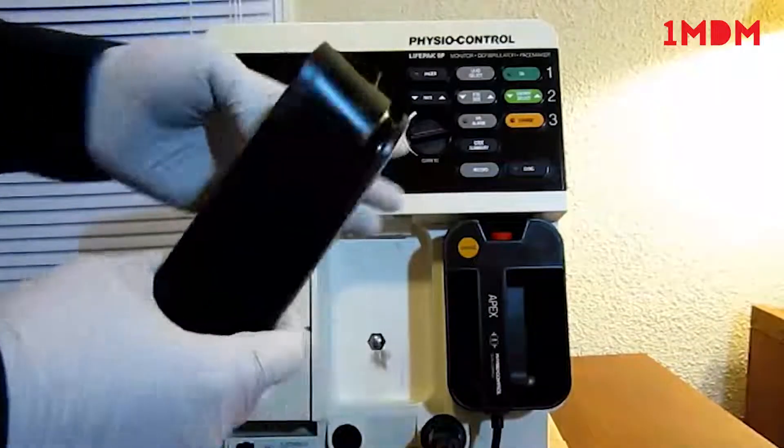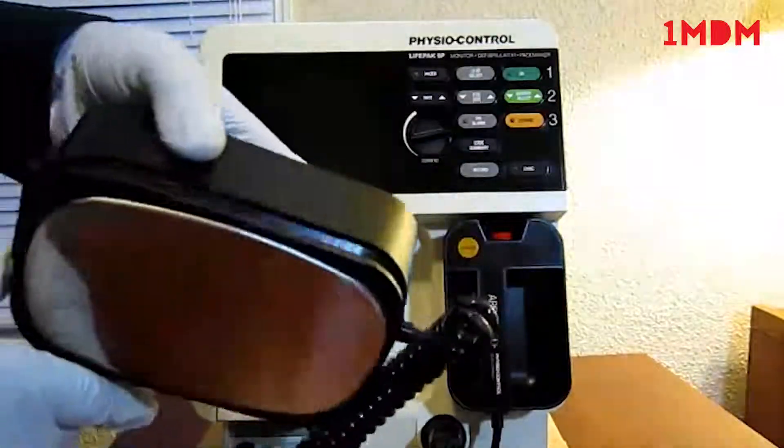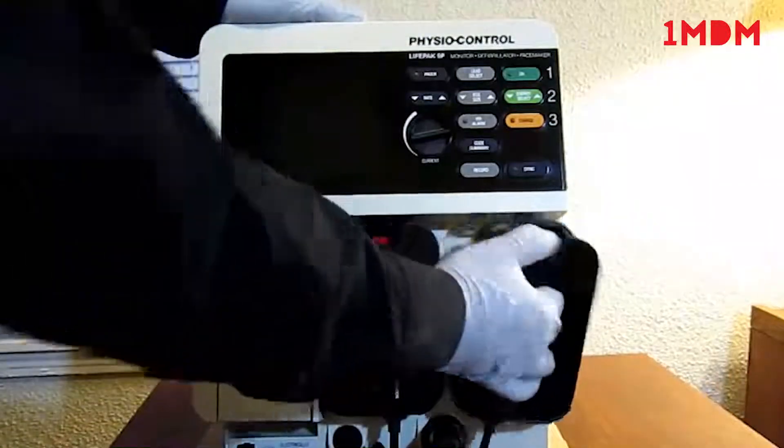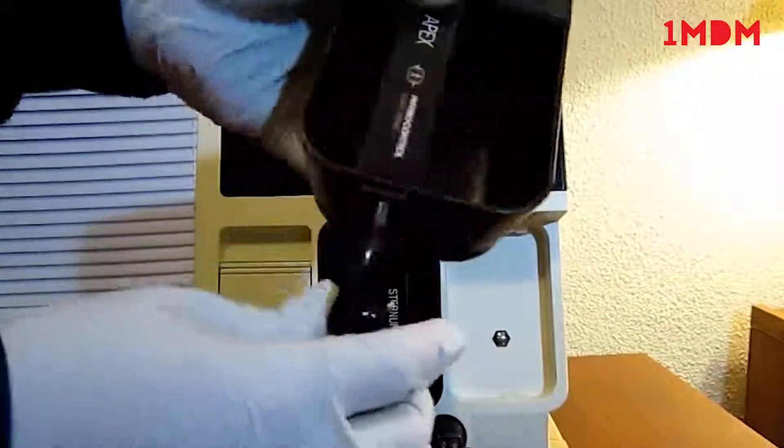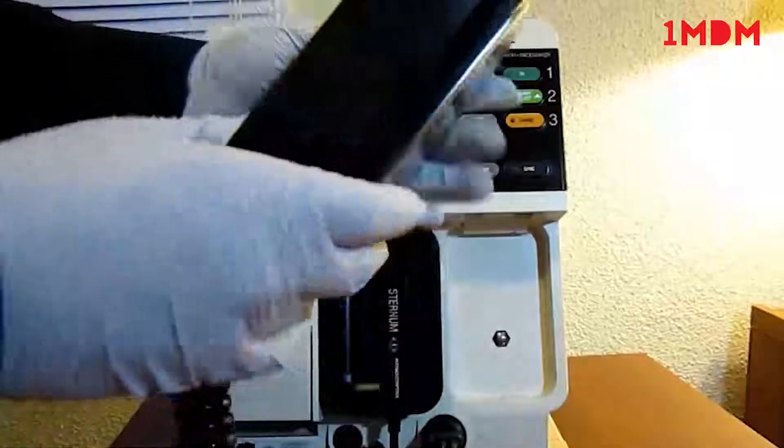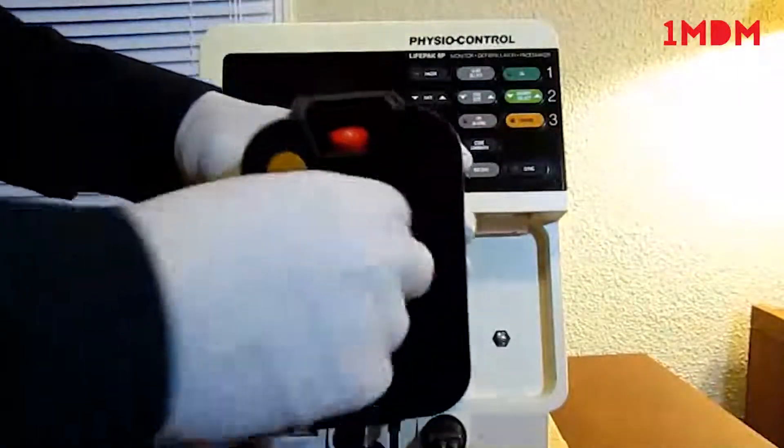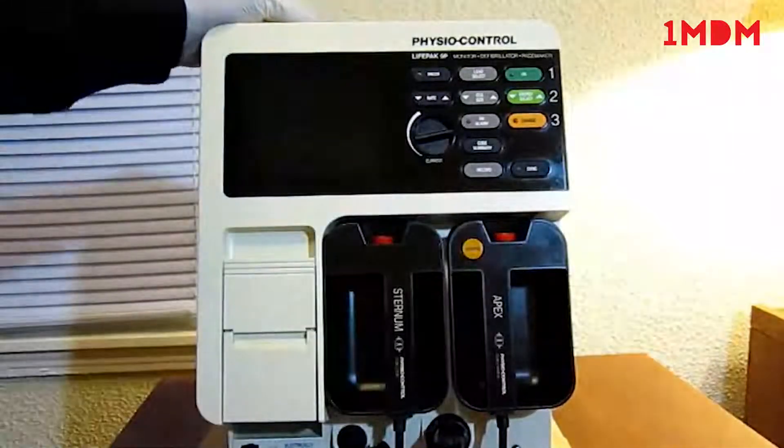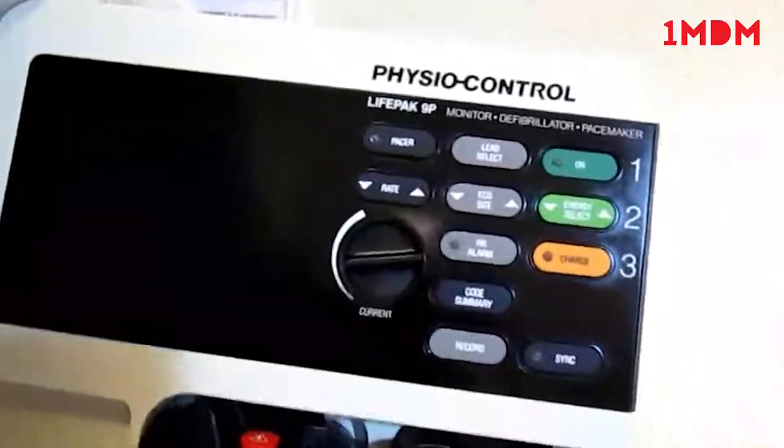The buttons, everything works. All the buttons look in good shape.